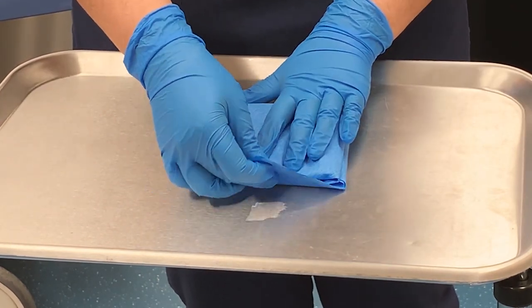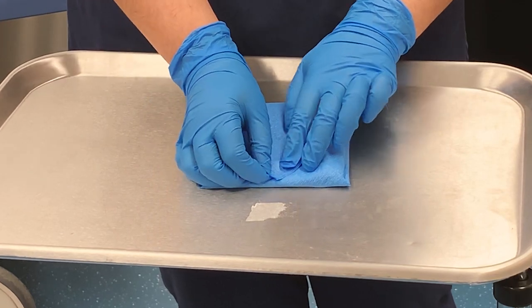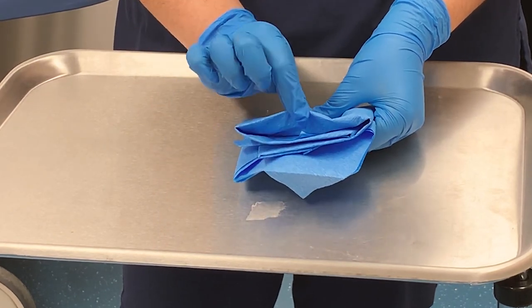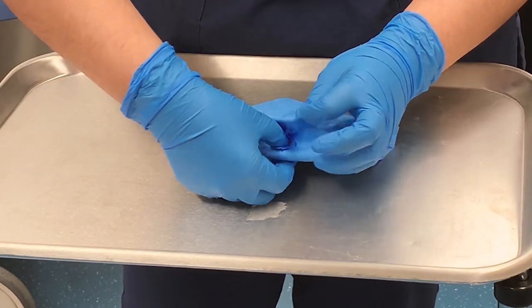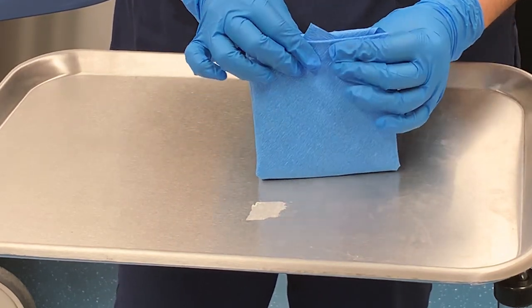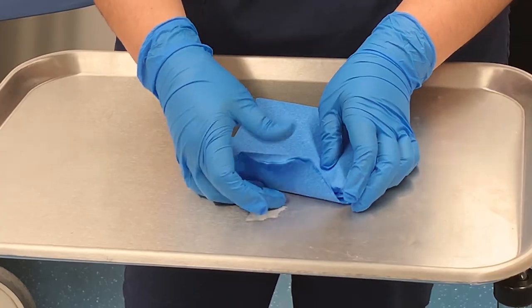So we're coming towards the last steps here. Just fold the paper over, and make one last triangle at the top because we're going to make a little tab. You'll see there's a little pocket right here in this space — you're going to put this tab inside that little pocket that you made. And you can see the little tab sticking out from under. If you were to move this around, you can feel that your instruments do not move, and that's exactly what we want.